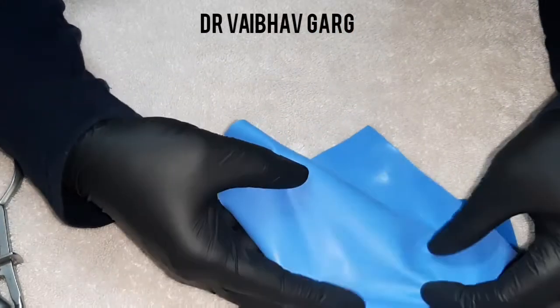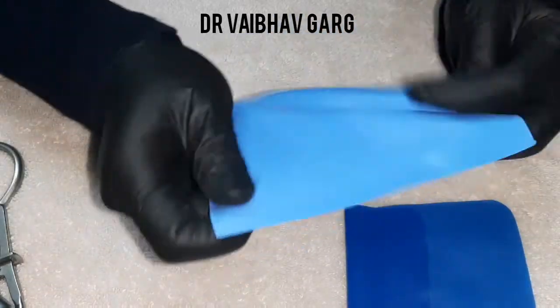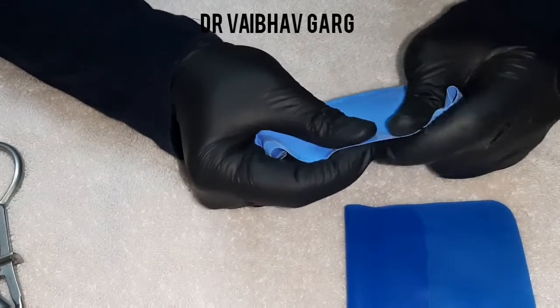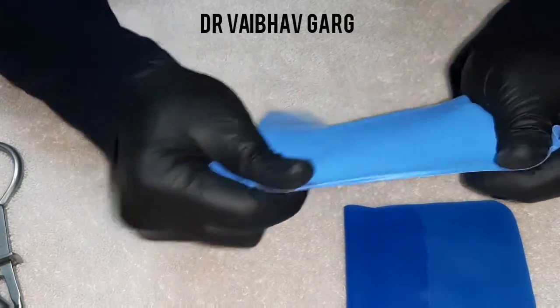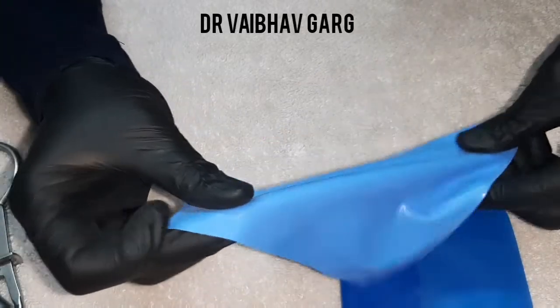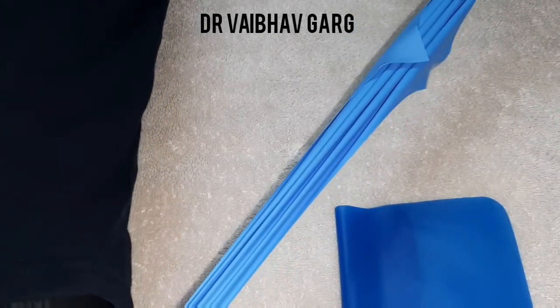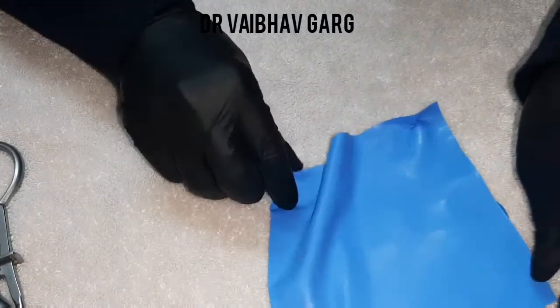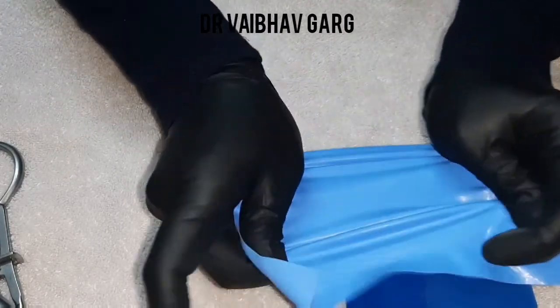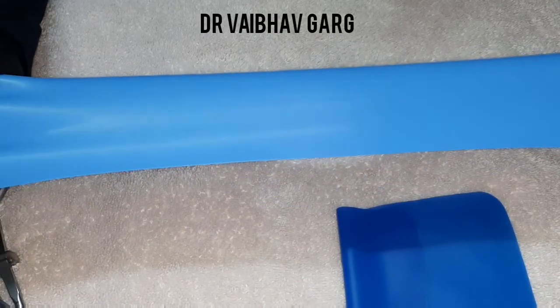The reflective area and the matte surface are clearly distinguishable in this brand. They are slightly heavy — medium-heavy in consistency. They are also six by six in size and the stretching capability is very high — you can stretch them substantially and they don't tear apart.